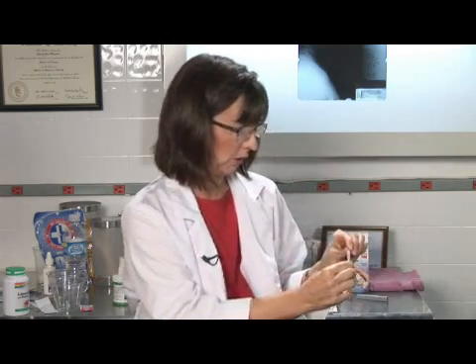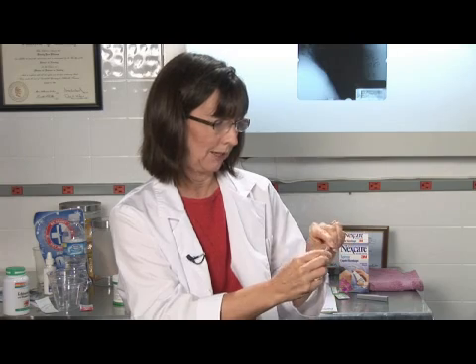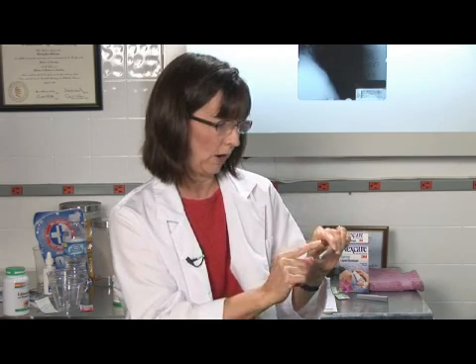Once you think the thermometer is done, you turn it so that you can see the mercury and read where it is on the dial. 98.6 is normal orally, 97.6 is normal under your arm, and 99.6 is normal rectally. So you have a fever in any of those places if the temperature is higher than that.